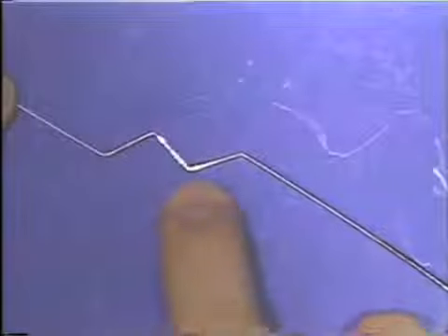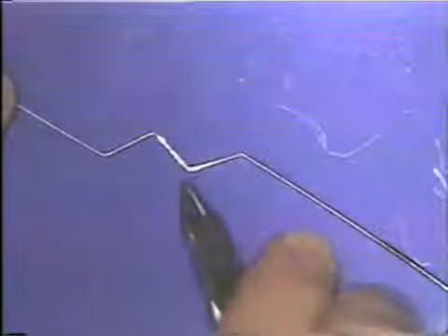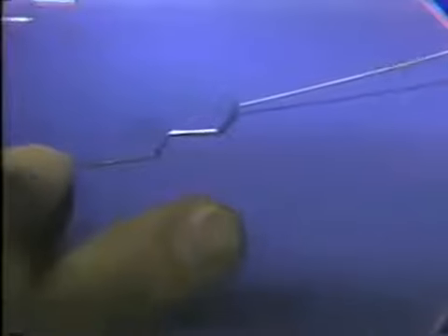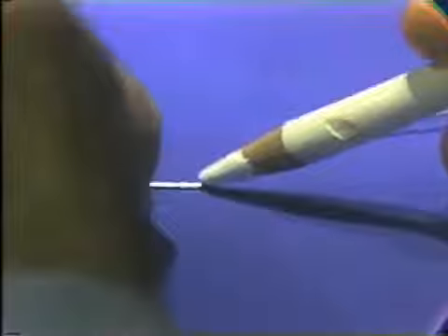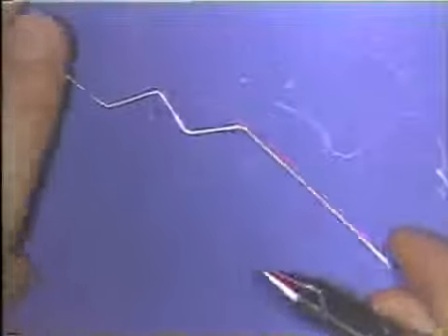Now the wire is flat on the table up to this point right here. Again, the wire is marked at the point of last contact with the table. And the same procedure is followed, grasping the wire in the flat base portion of the plier, and a compensating downward bend is made in the wire to adapt it to the tabletop surface.